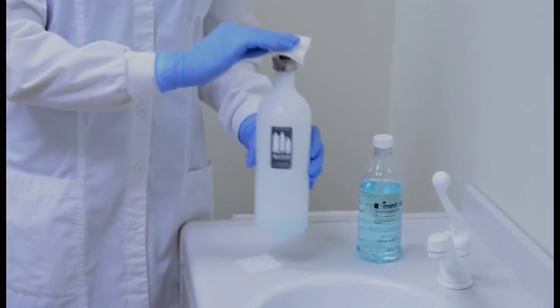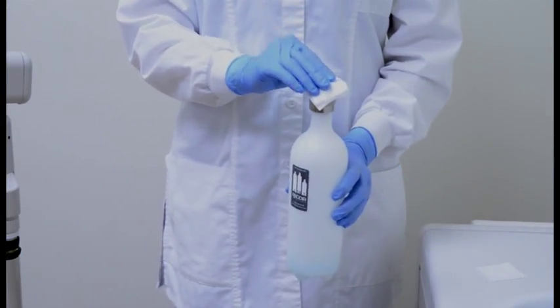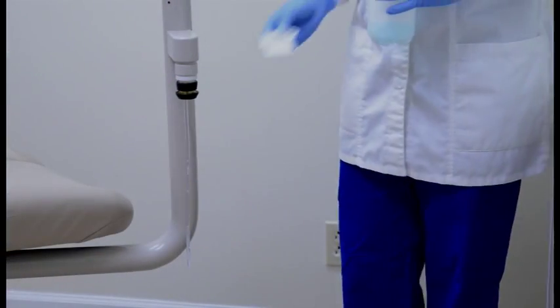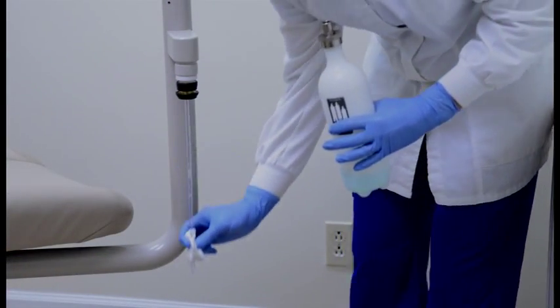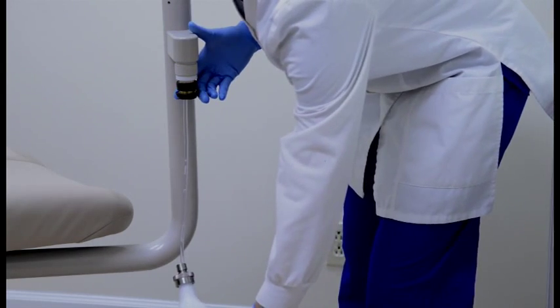Place your 2x2 on the top of the bottle opening and gently swish it around to coat the sides of the bottle for cleaning. Using the same 2x2, wipe down the pickup tube for optimal cleaning. Now place the water bottle back onto the dental unit.